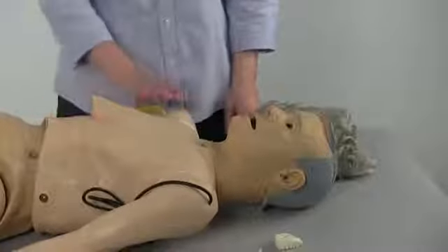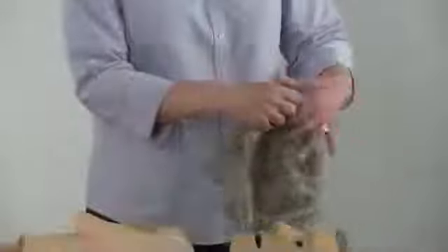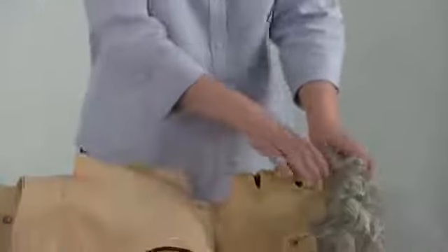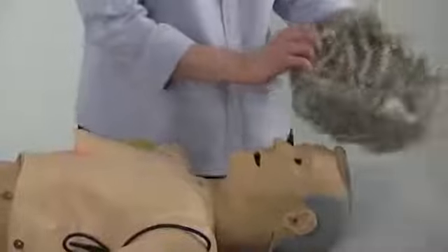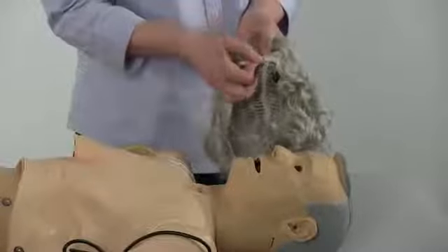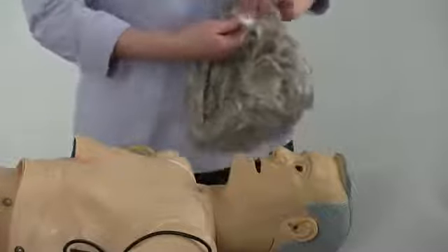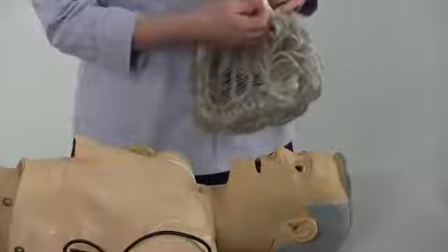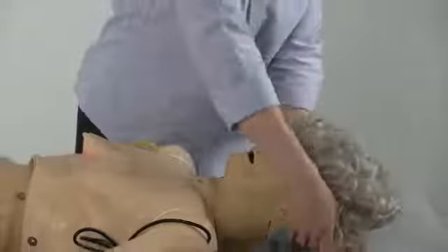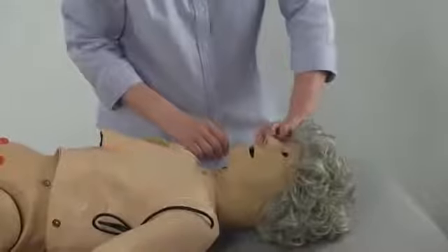All versions of the elderly appearing Jerry or young appearing Carrie come with additional features. The wig, when initially applied, is very loose fitting. To adjust the wig, simply use the tabs and the hooks inside the wig to give it a tighter fit when applying it to the mannequin. This will help prevent it from sliding or moving during any additional procedures.